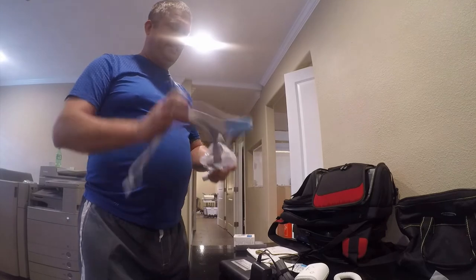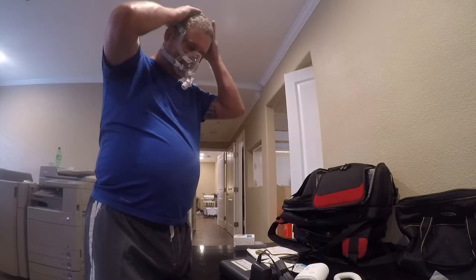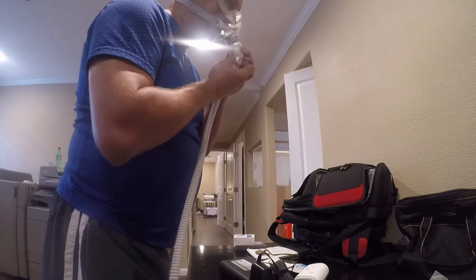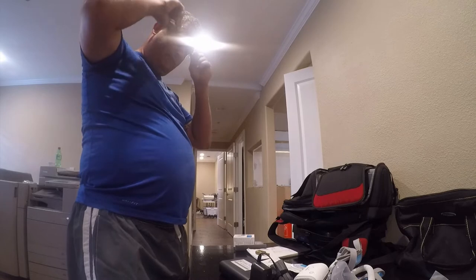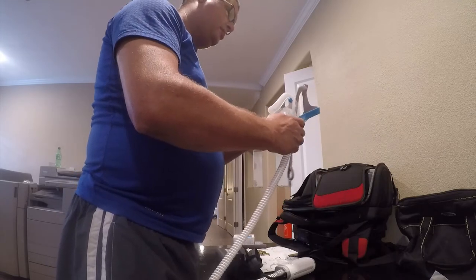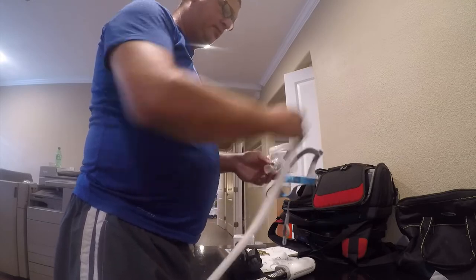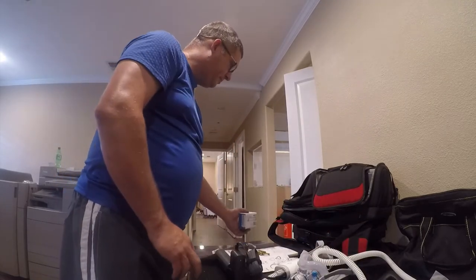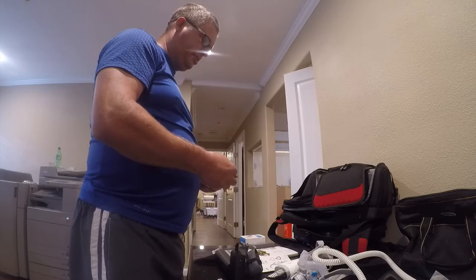It fits really nice and this has a magnetic feature — you literally snap that on there and it fits really good. I'll probably have to look at the instructions. I'll be sleeping on this tonight because I honestly need to know how it works. So that's the bag for that, those are extras, and this is the one we'll use for this trip. Supposedly it's good for 30 days once it's opened.